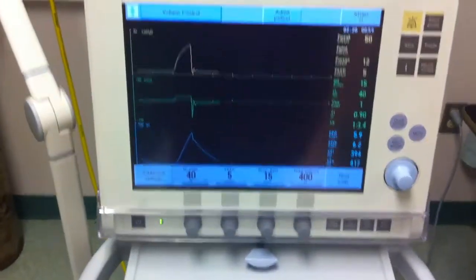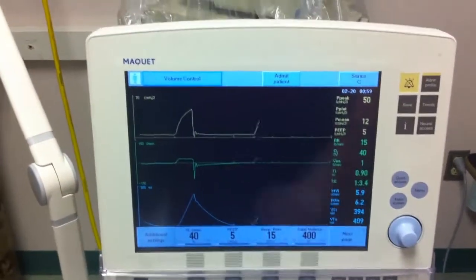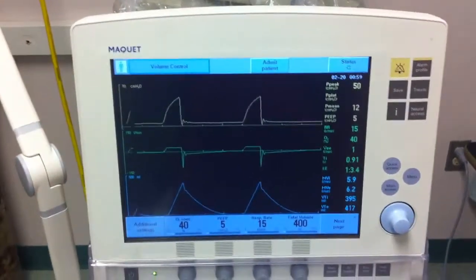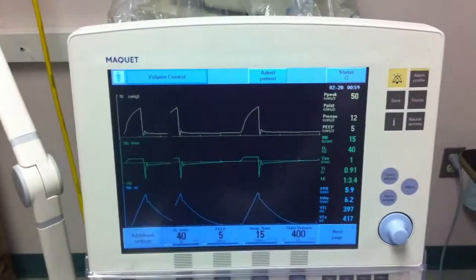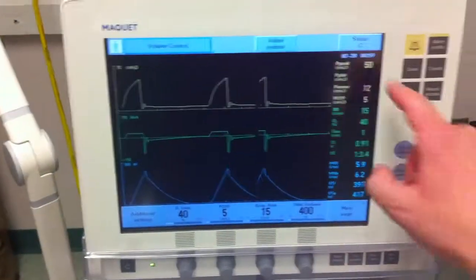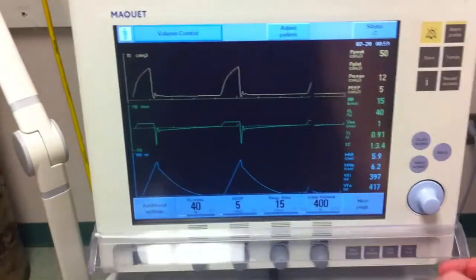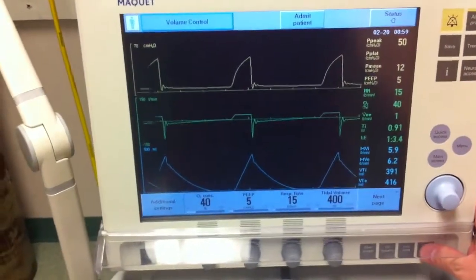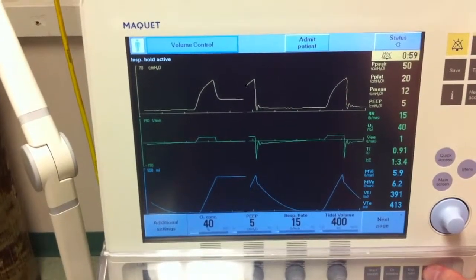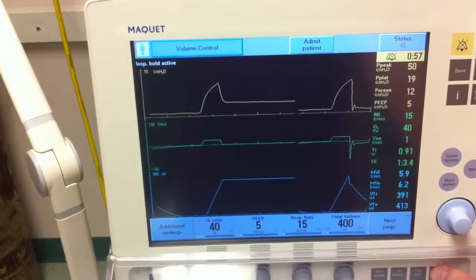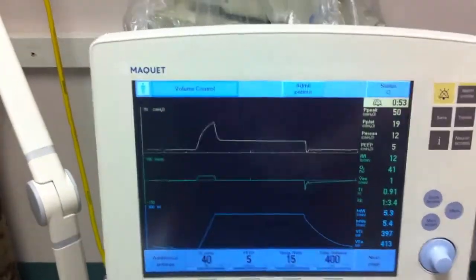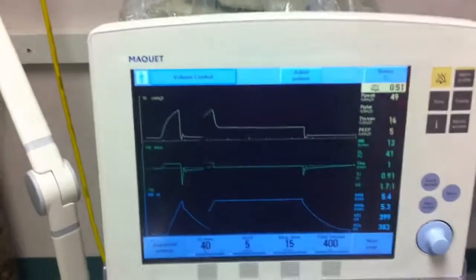Closing out the loop window puts us in just the scalar window. Pay close attention to the pressure-time waveform. You notice that peak pressure is very elevated at 50, and you decide to initiate an inspiratory hold. With the inspiratory hold, you now have a plateau pressure of 19 to 20, and you can notice the significant disparity between peak pressure and plateau pressure.